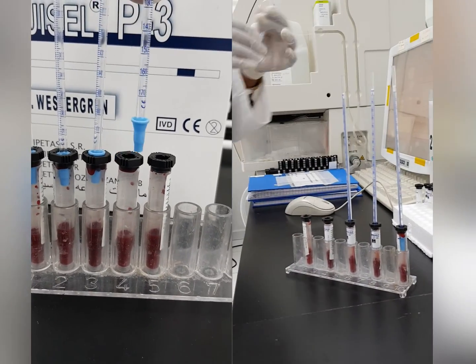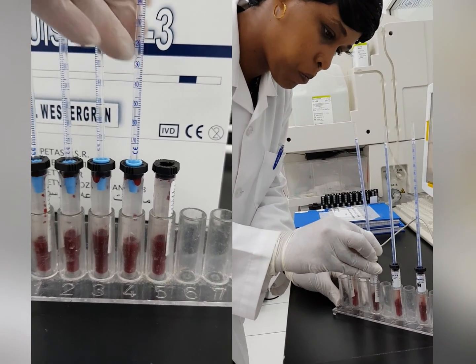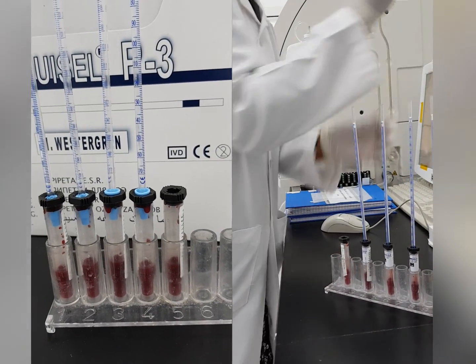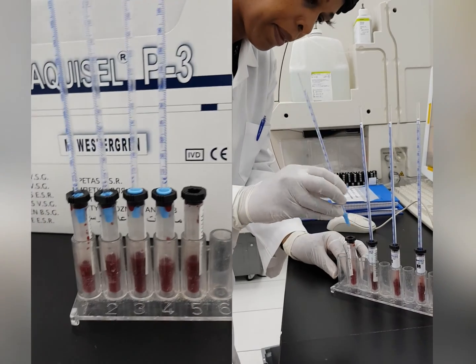Place the tubes in a vertical position and confirm the position and label of each patient sample.